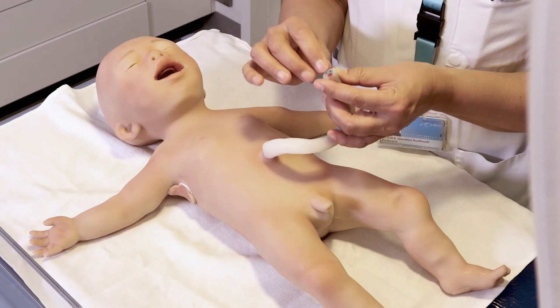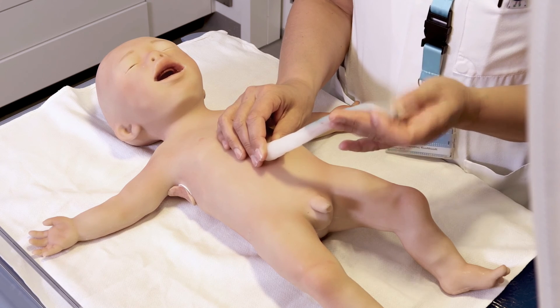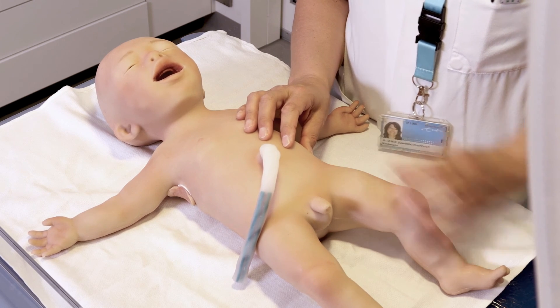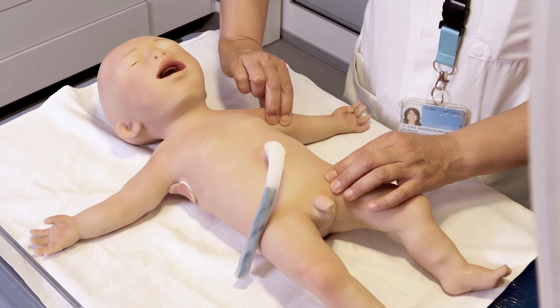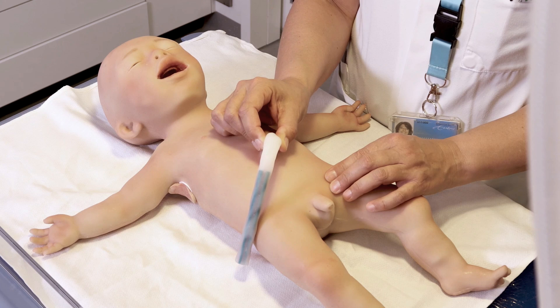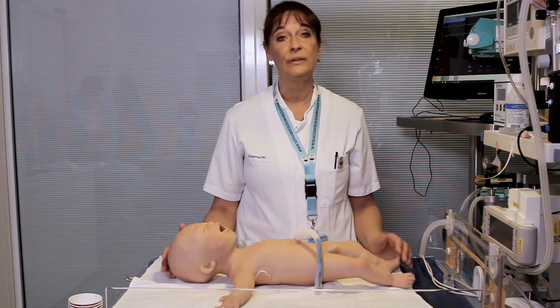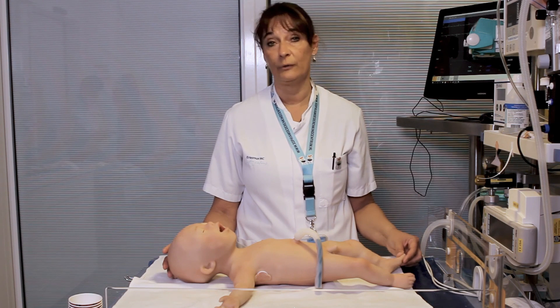The baby also has an umbilical cord where you can insert an arterial or venous catheter, and you can perform catheterization. You can feel pulses in the femoral and also brachial pulsations, and you can feel pulses in the umbilical cord too. So if you want to run an extended scenario, a lot of features can be used, and it makes this mannequin really specific.